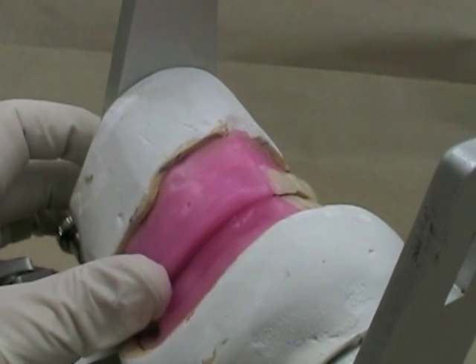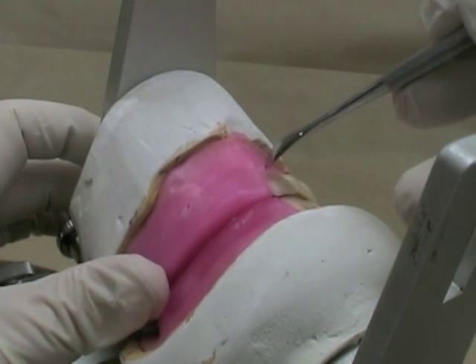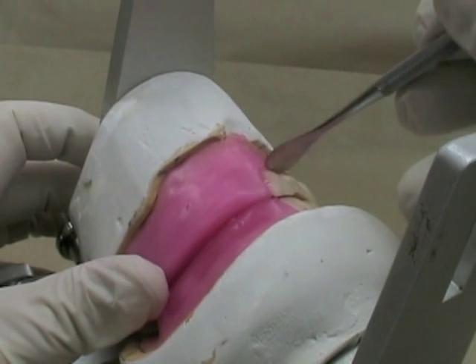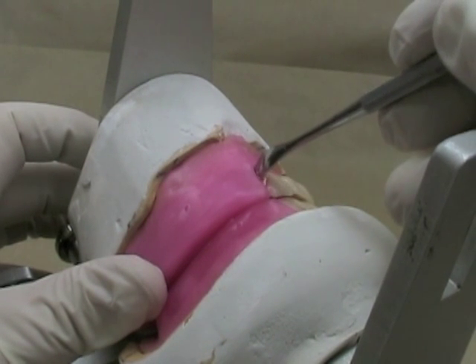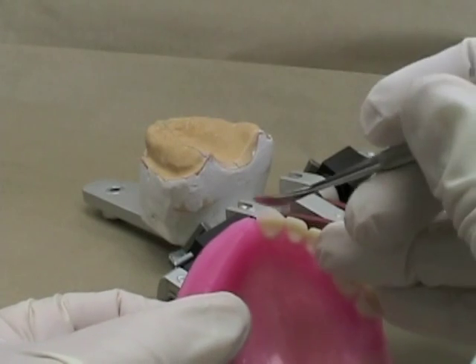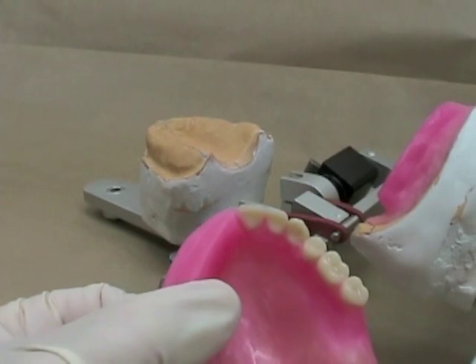We said that I didn't have quite enough overjet on the central incisor. So I'm going to increase the overjet there now just by softening the wax all the way around the central incisor. You can see that as I'm using my instrument, the wax is becoming molten and I'm going out underneath the tooth so that I've got it good and softened. I'll also soften it a little bit on the lingual surface so that I'll be able to move it buccally very easily.